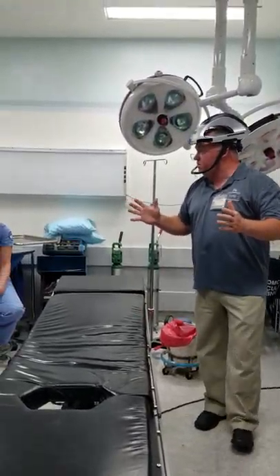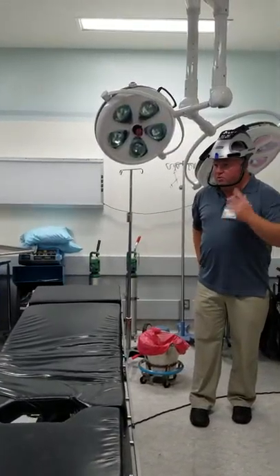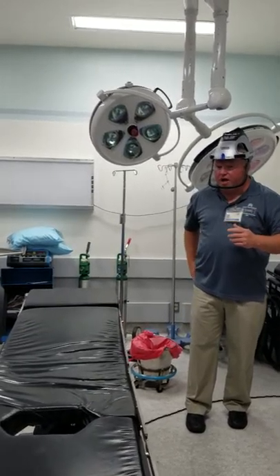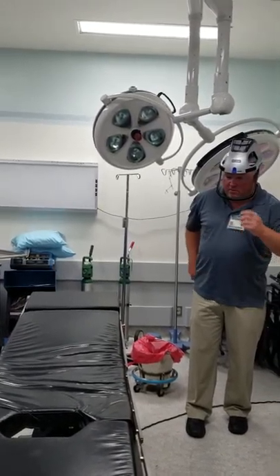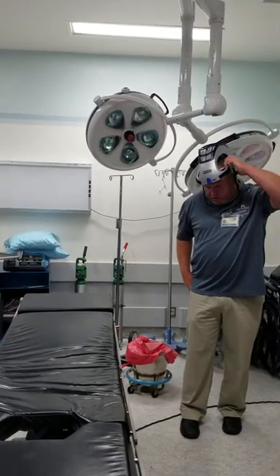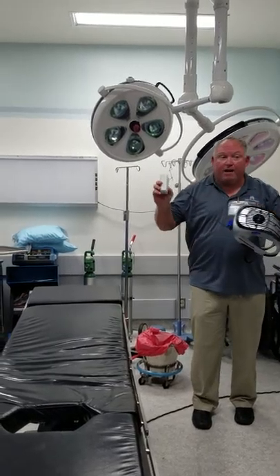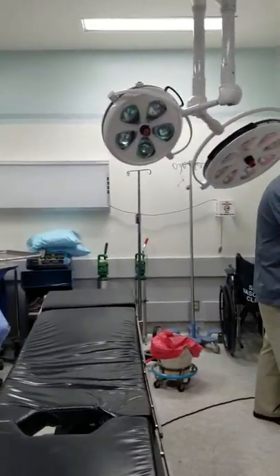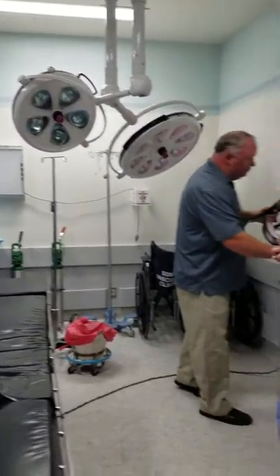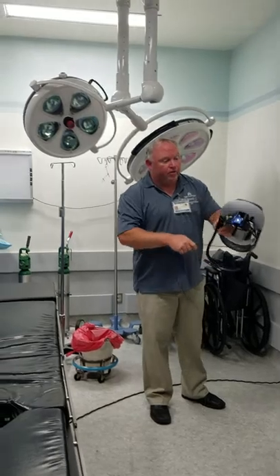This is what it will look like — that's how you do that process. Make sure when you're done, you plug the battery back into the charger and make sure it's charged for the next case. That's the hood.